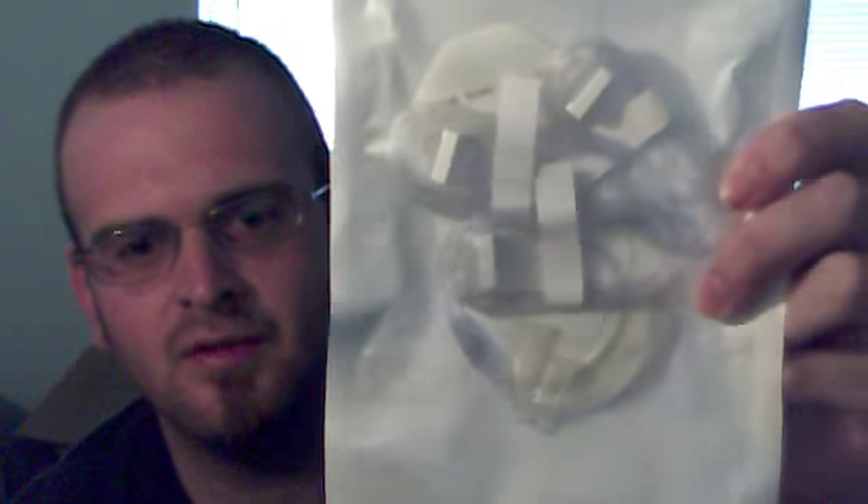I have 3 lines that go in me — very small needles, not big at all. If anybody has a problem with needles, it's not that big of a deal. You hardly feel them unless you move around a lot. Here's the package. I'm not going to pull them out because everything is sterile. The needles are about this long — maybe not even quite that long. By the time they're in there, you don't even really notice them. There is a numbing solution out there for people that don't like needles — you don't even feel it.